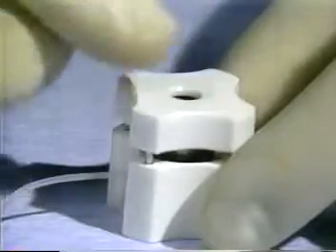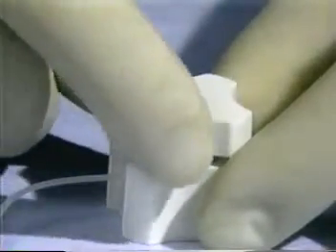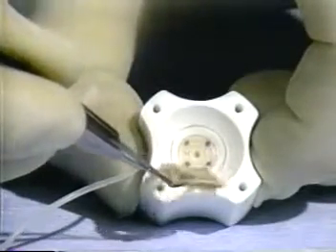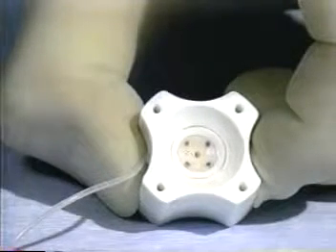The thumb is placed directly over the blade and the blade assembly pressed down firmly. The blade assembly is then removed by pulling it upward. The scleral rim of the donor cornea is picked up with forceps and is removed from the cutting block. This releases the vacuum and leaves the marked corneal button in the well of the cutting block.